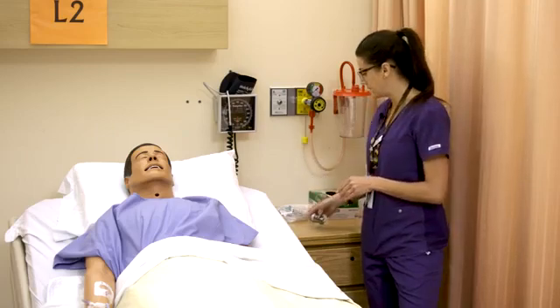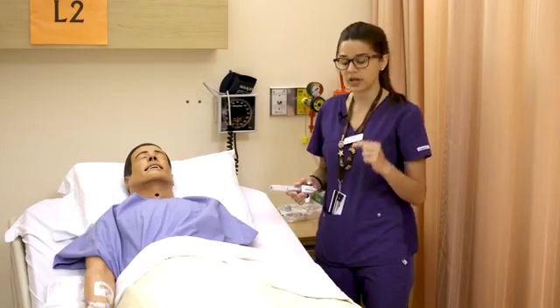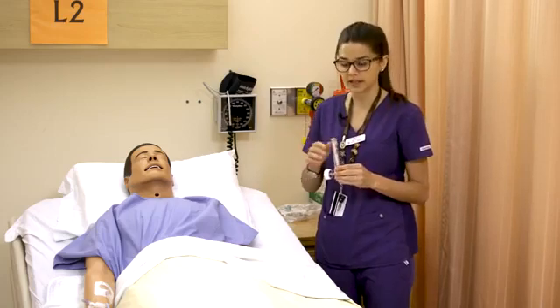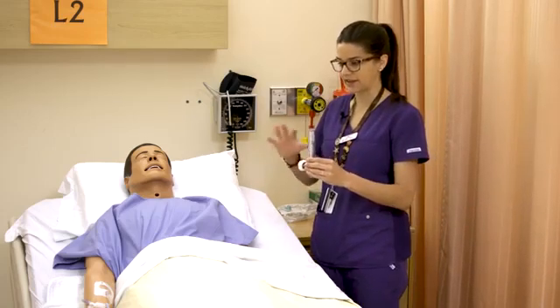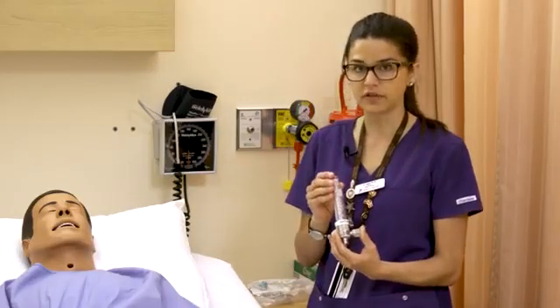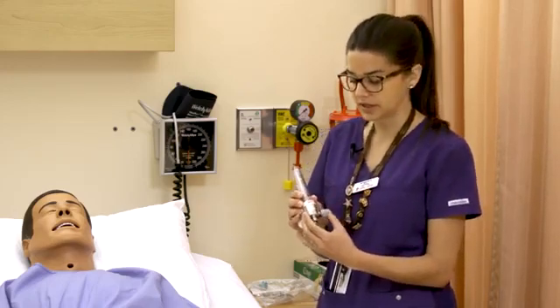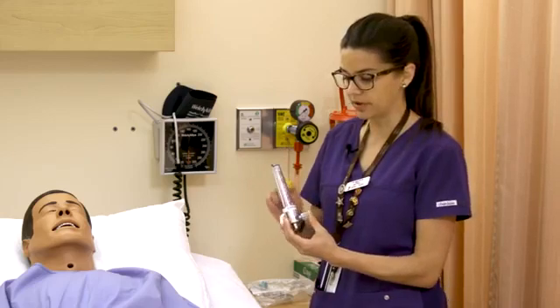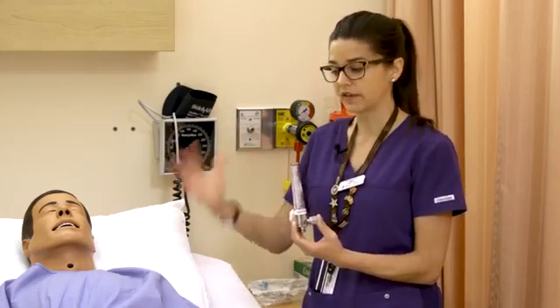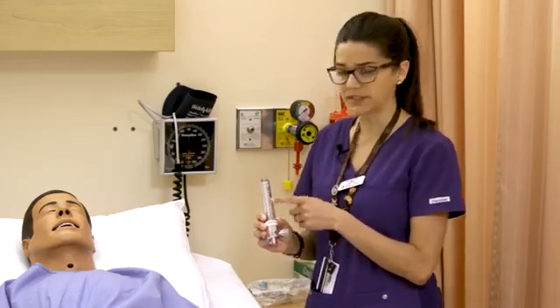Oxygen isn't necessarily administered using FiO2 — it's actually delivered using liters per minute. That's how we signify the amount that we're giving consistently. You'd use a device called a flow meter to deliver a specific liters-per-minute amount of oxygen. Using this flow meter, we know how many liters per minute a patient is getting, and then depending on the FiO2 delivery they need based on their situation, we would set this device accordingly.